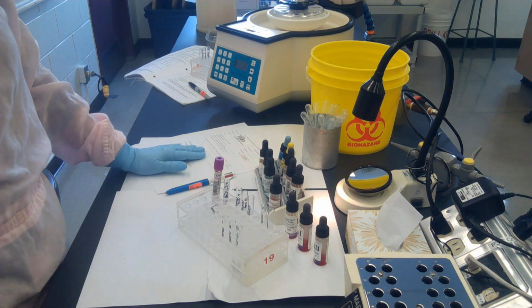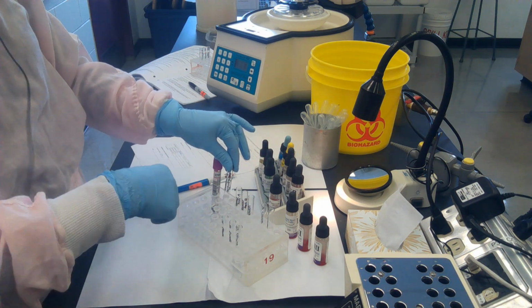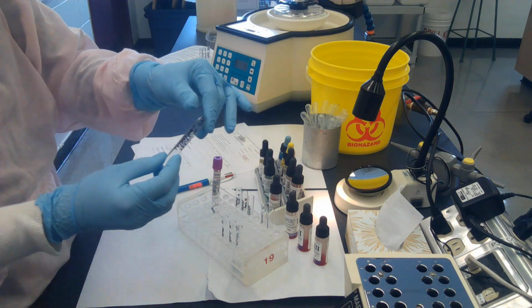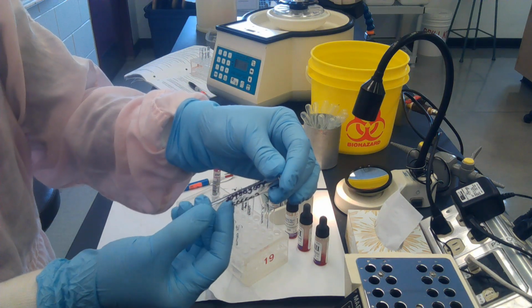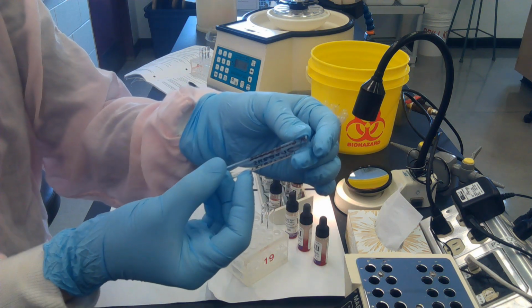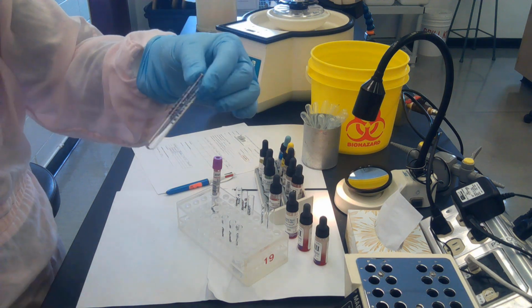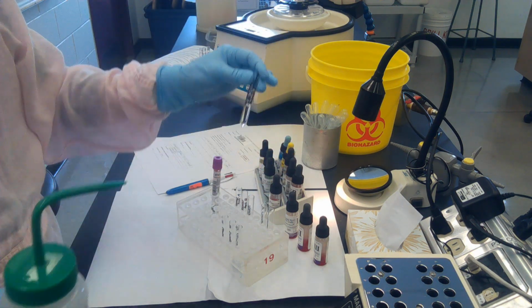I've got my test tube set up. What I've got is a tube in which my 5% suspension of my patient cells will be made, and it's labeled with the first name, last name, PHN, the accession number, and 5%. Actually, I don't have that filled yet. I'll fill that about 1/3 full with saline.